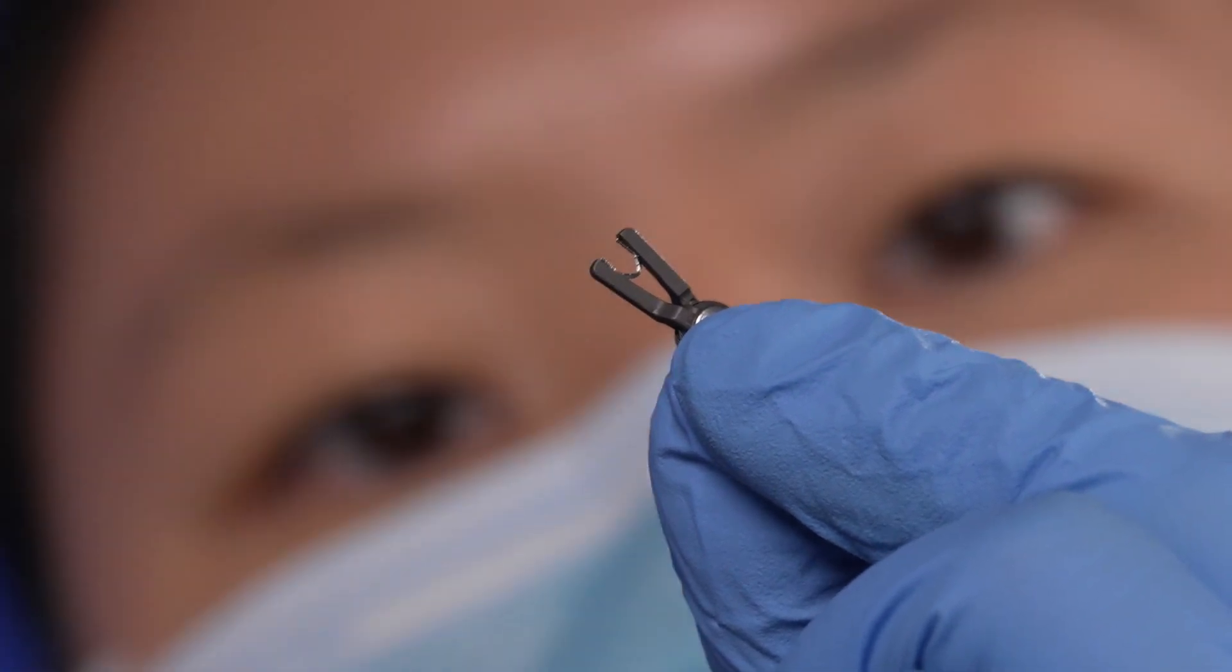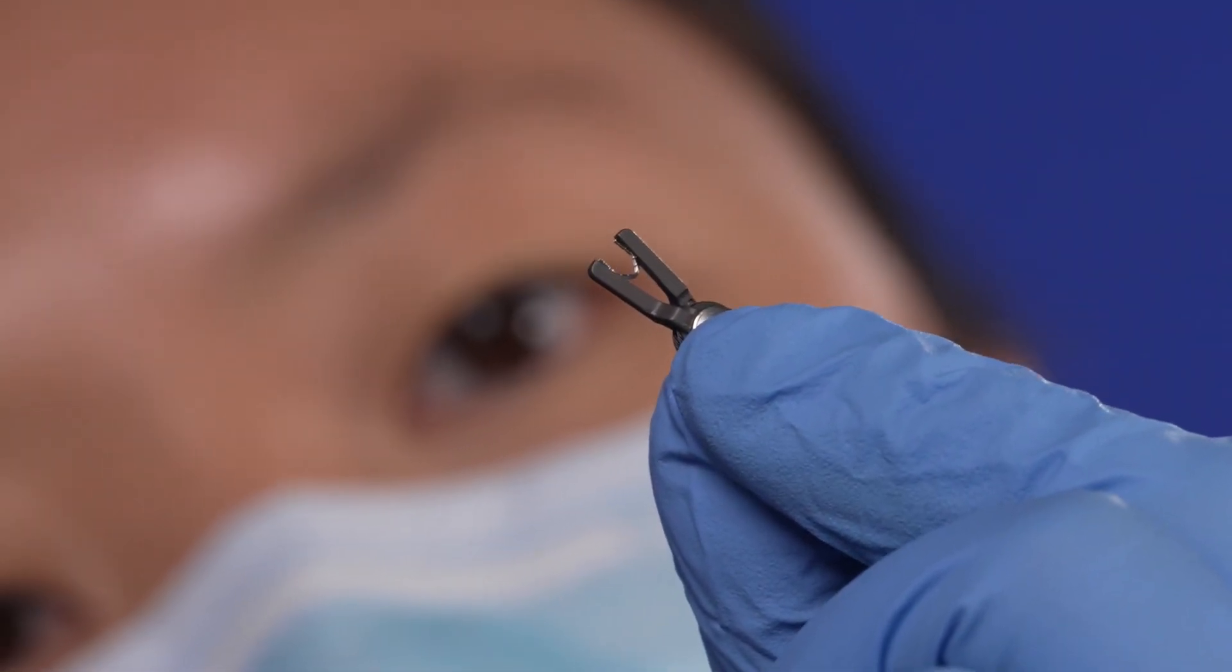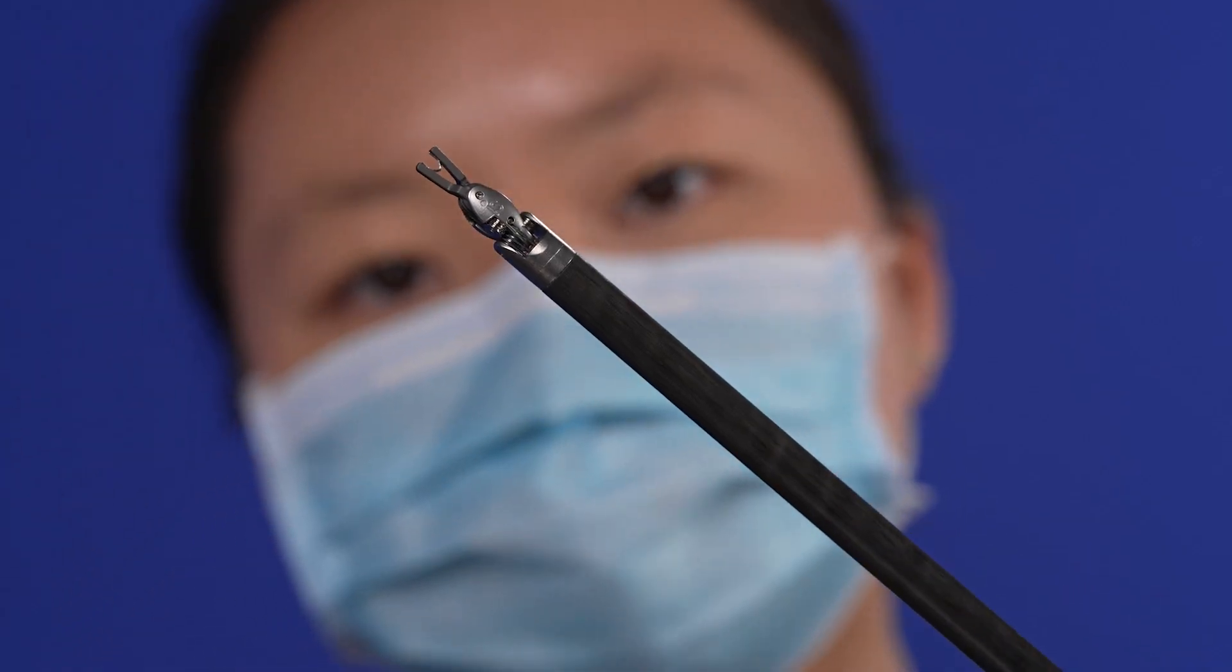Once installed, verify that the clip is fully inserted into the applier jaws and the clip legs do not protrude beyond the end of the jaws.